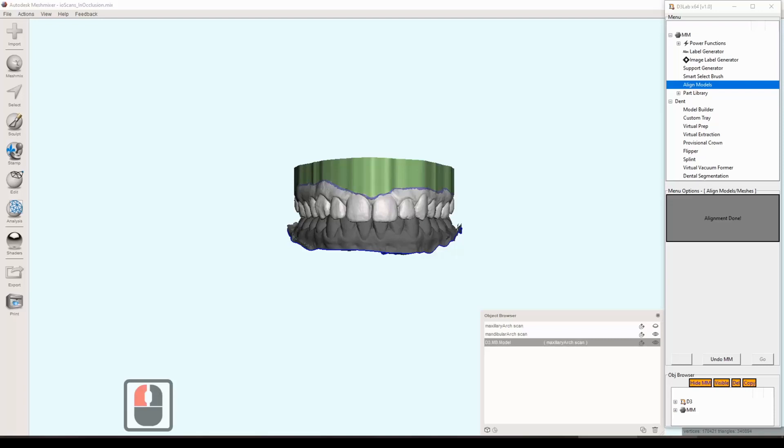The model doesn't need to be necessarily based or aligned to use the segmentation tool. The only requirement is it just needs to be a manifold object. So it can't be like the scan on the bottom there with the blue boundary, it has to be solid manifold. To achieve that requirement you could run through the model builder that will work every time, or there's many other ways to do it. But the only requirement is that it does need to be solid or manifold.